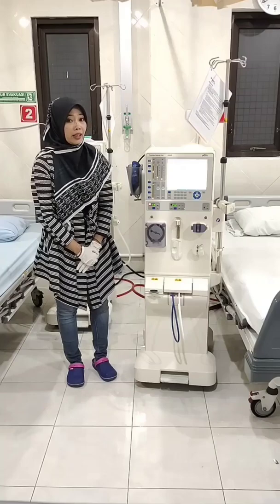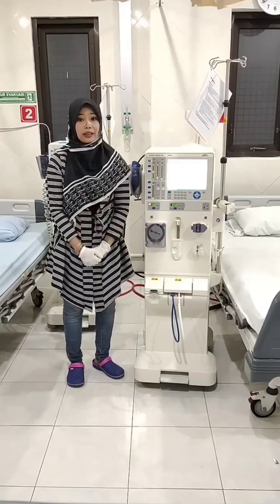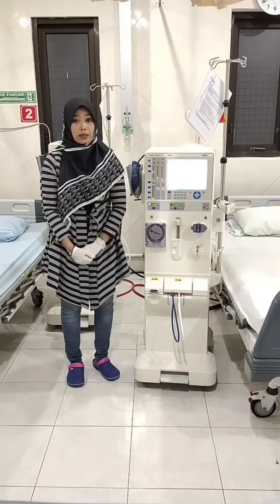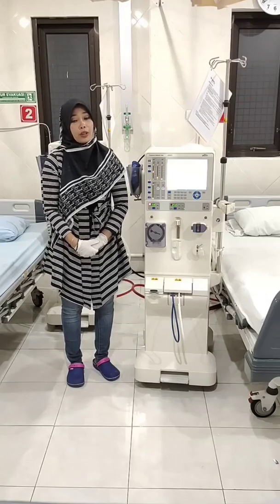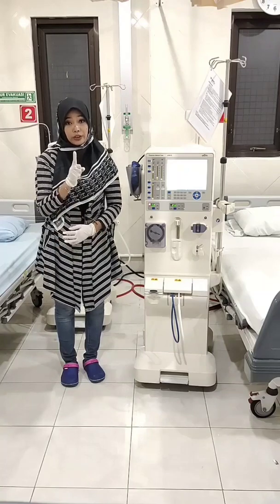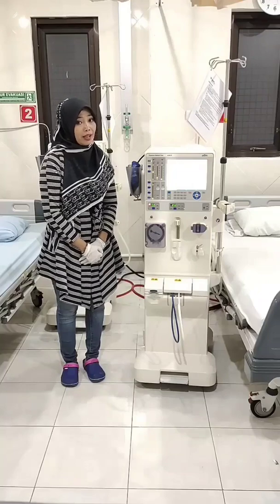Okay, here I will review the understanding of the hemodialysis machine, parts of the hemodialysis machine, how to operate the hemodialysis machine, and maintenance of the hemodialysis machine. The first discussion is about the understanding of the hemodialysis machine.